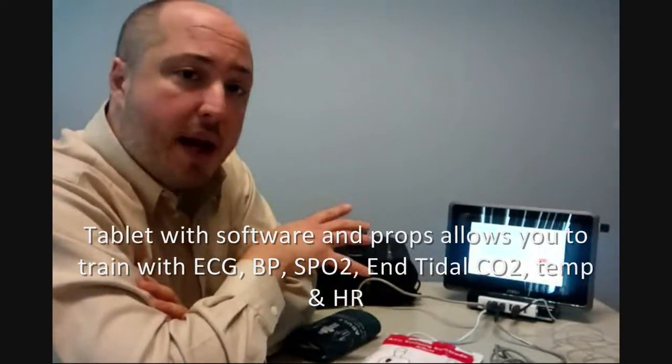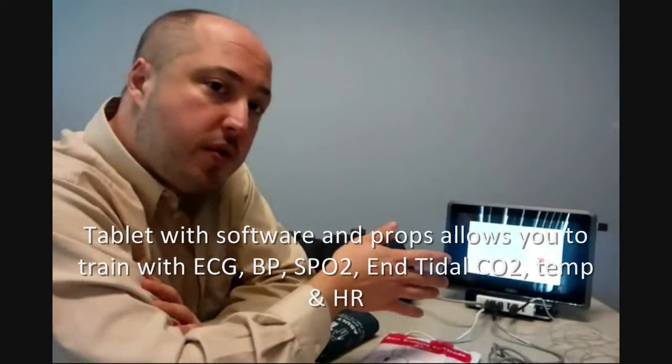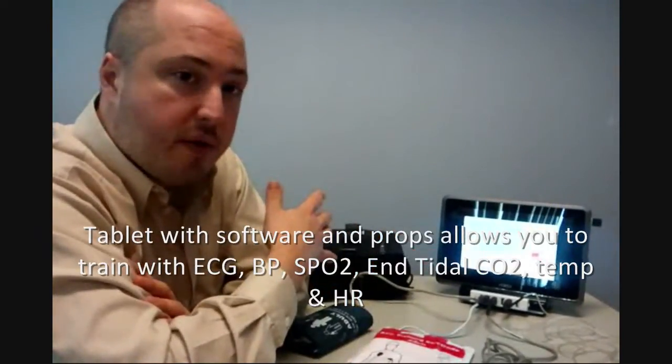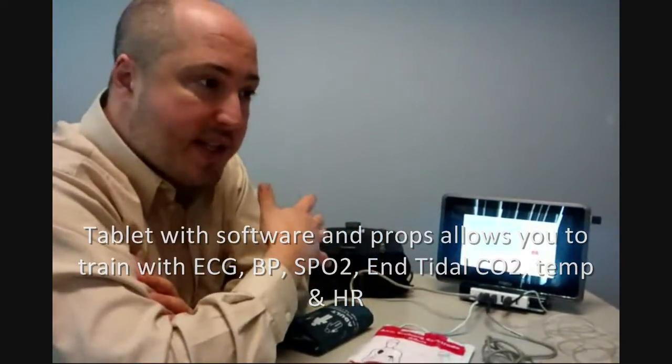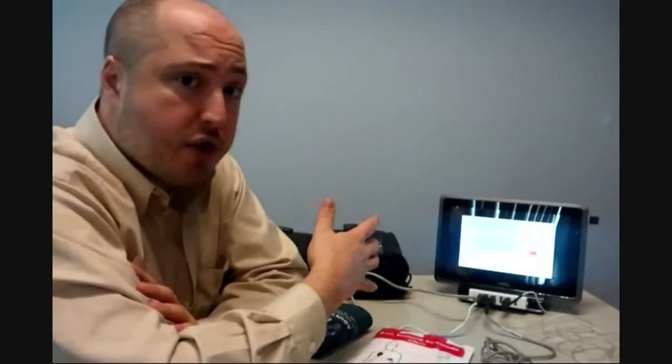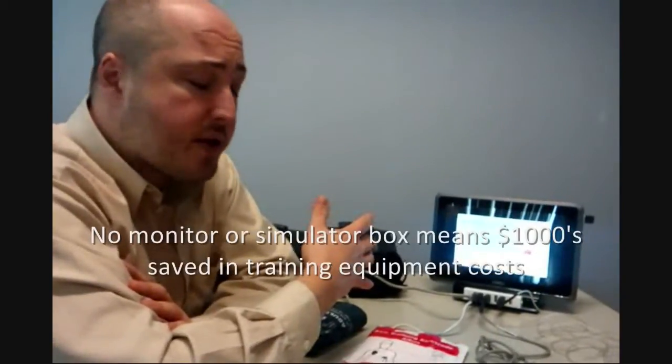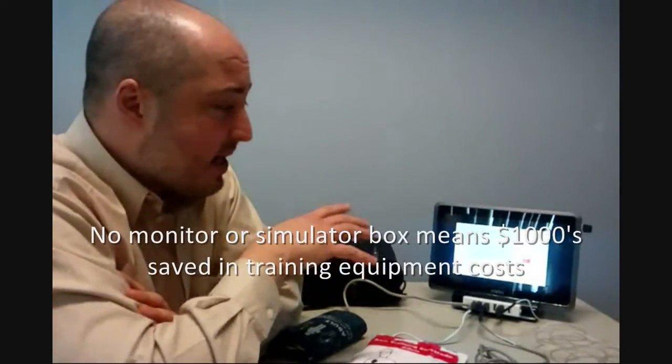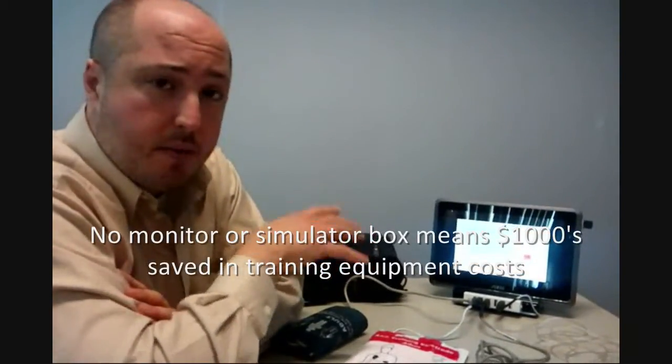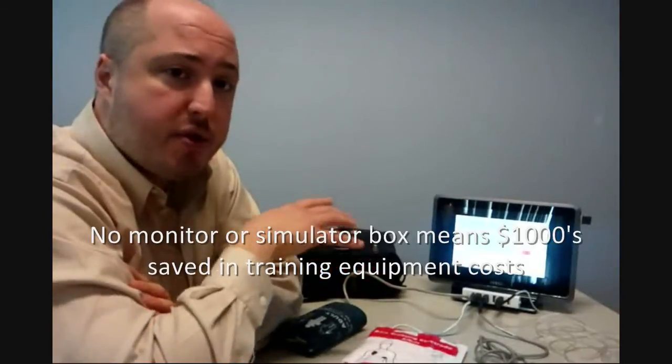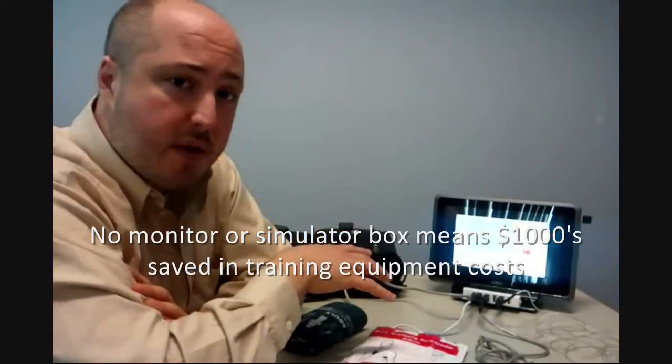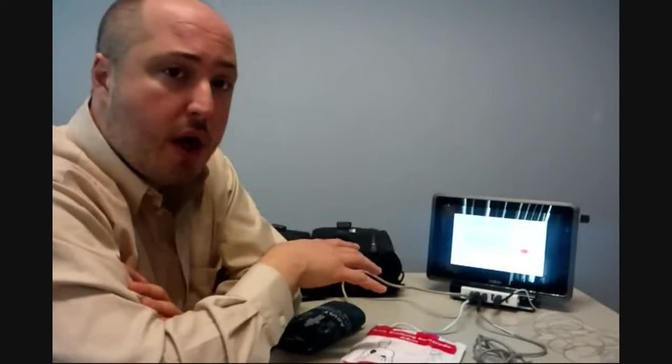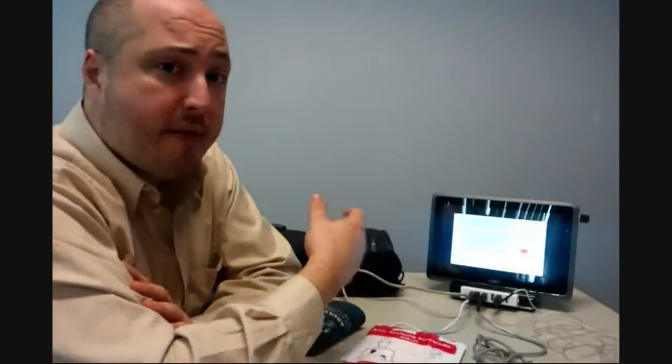By using our product, you're going to be able to replace the clinical monitor defibrillator plus that $600 to $800 ECG simulation box in your classroom, and add the capability to do blood pressure, pulse oximetry, tidal CO2 detection, and temperature, where those features are probably not available to you right now with the more expensive clinical equipment used in a classroom.